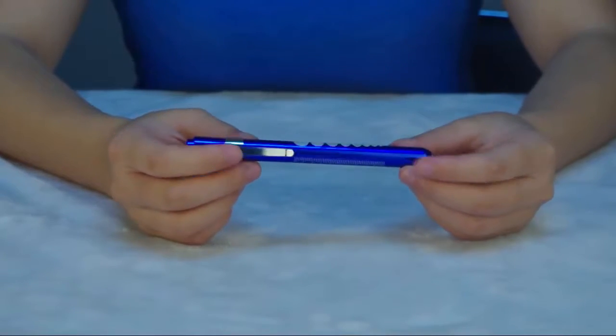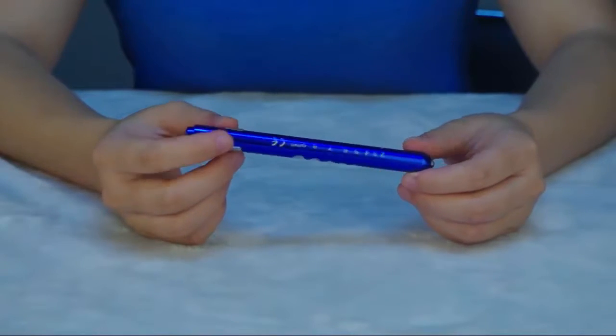Hello everybody, today we will talk about the ESCLY LED pen light.